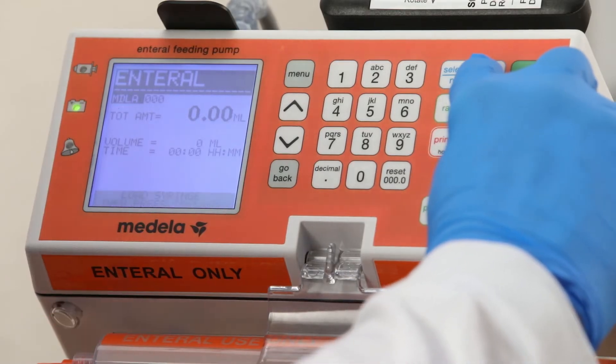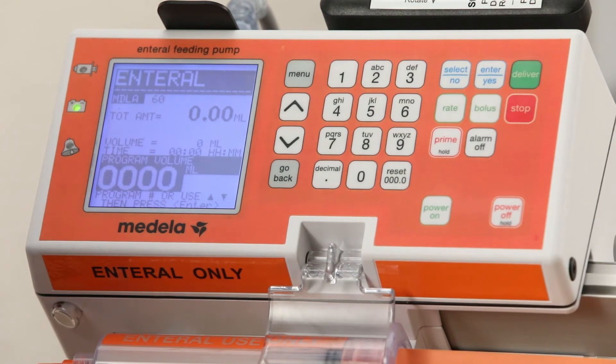Press the enter/yes key and the syringe size is automatically detected and displayed. Confirm displayed syringe size matches the size that was loaded.